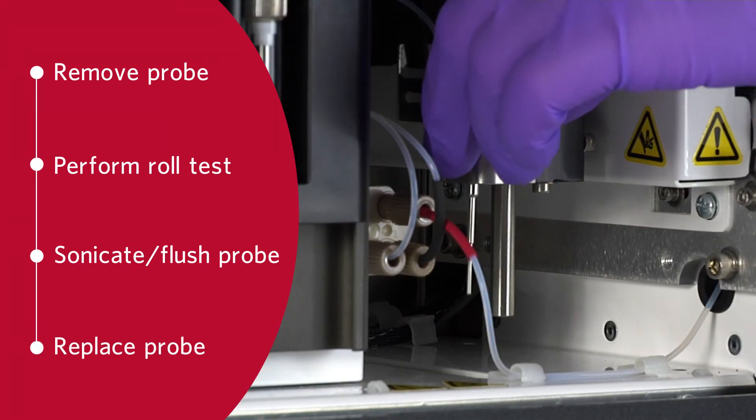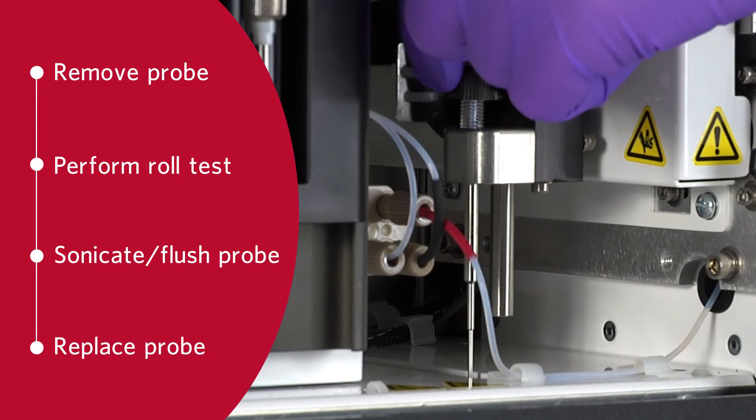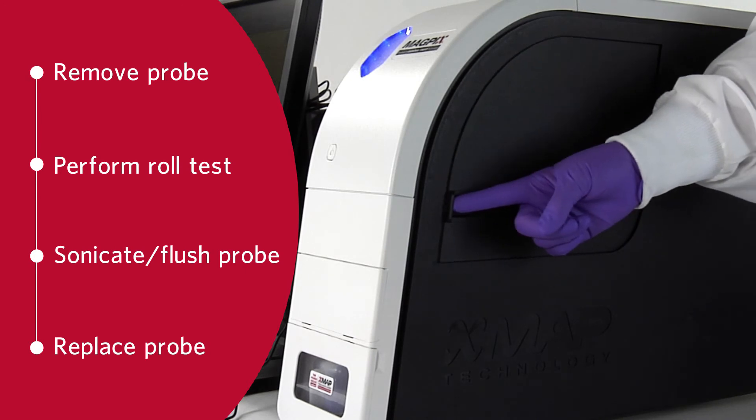Replace the sample probe. Tighten the cheminert fitting until you hear an audible click. The sample probe cleaning is now complete.